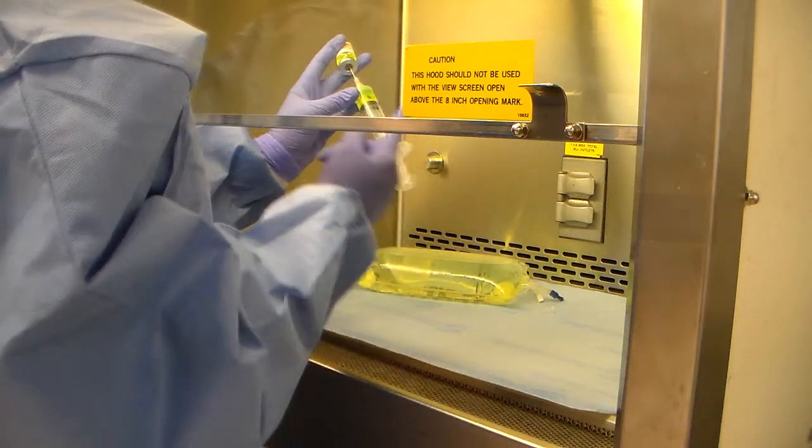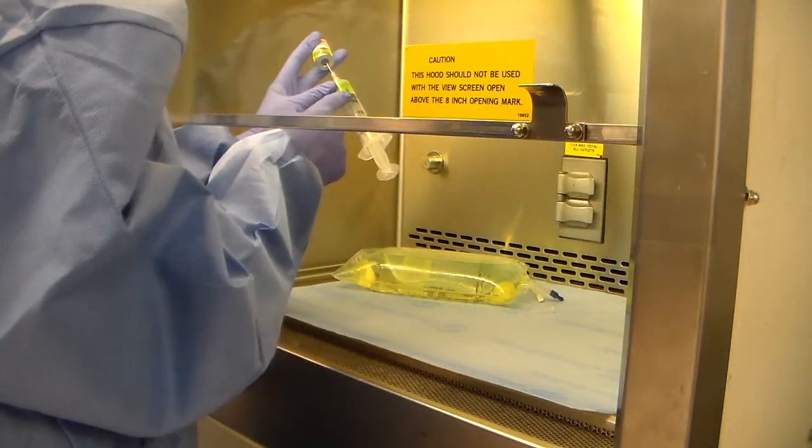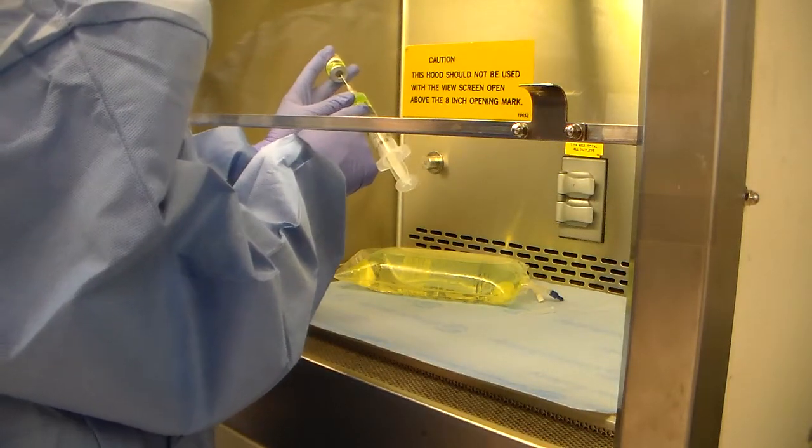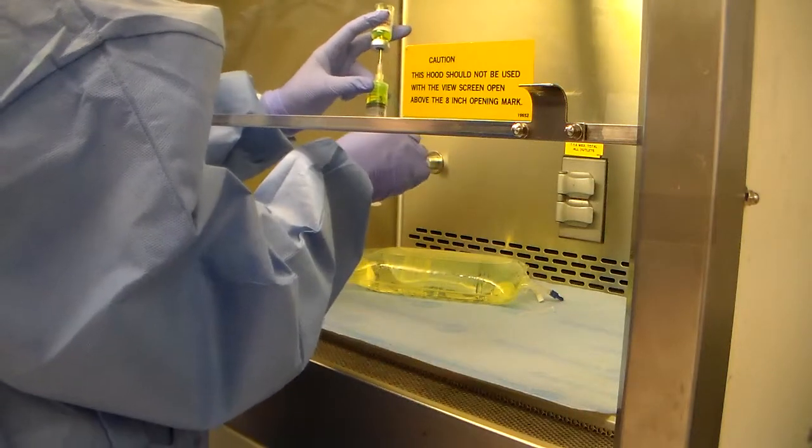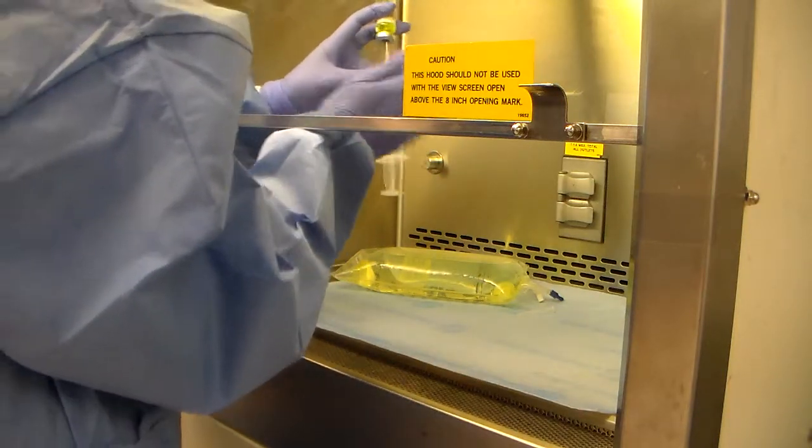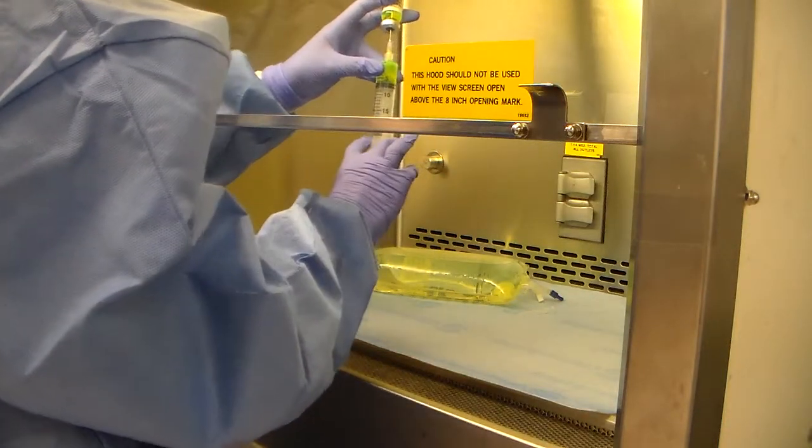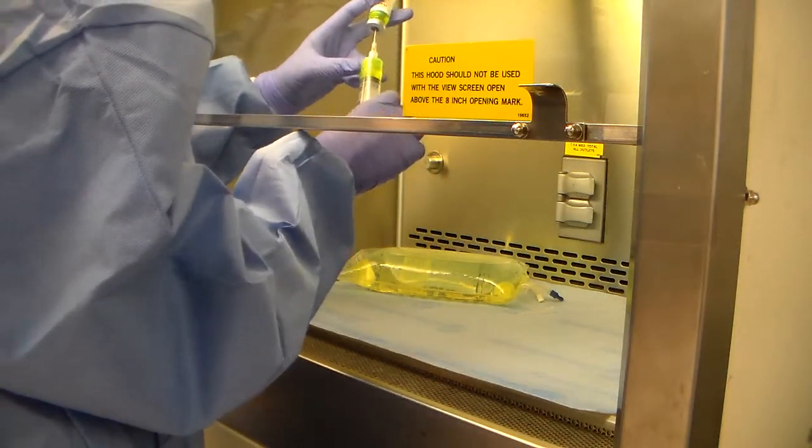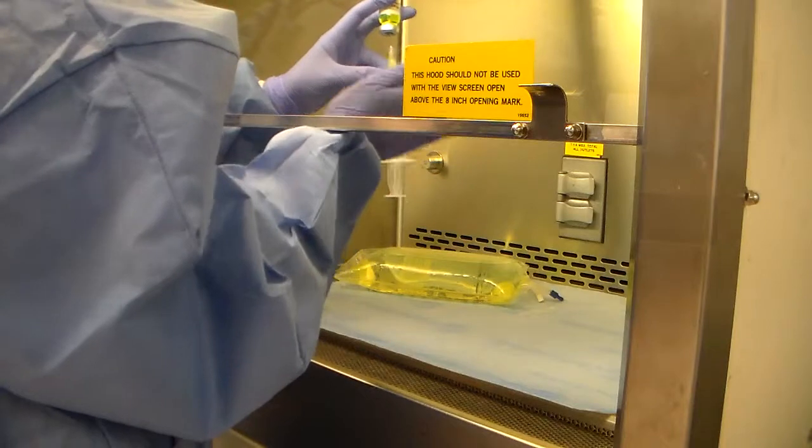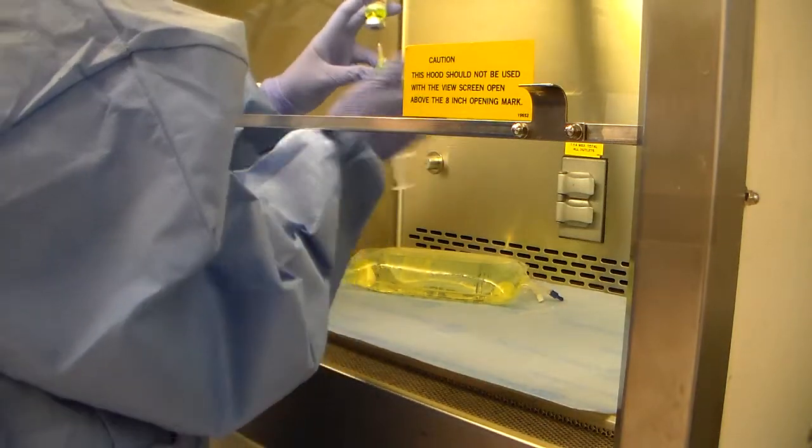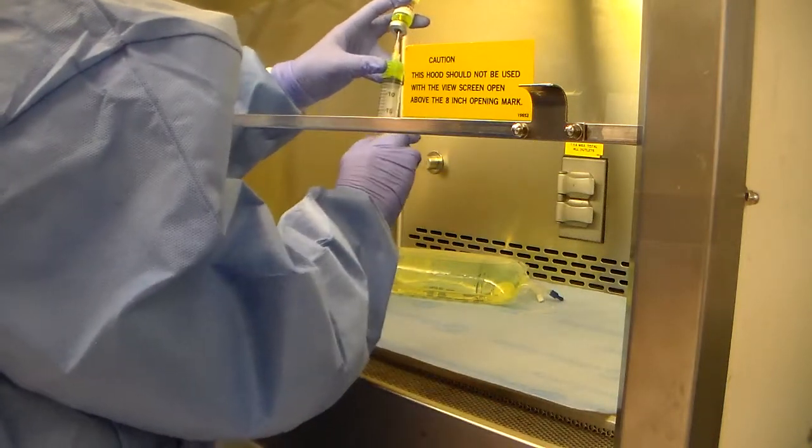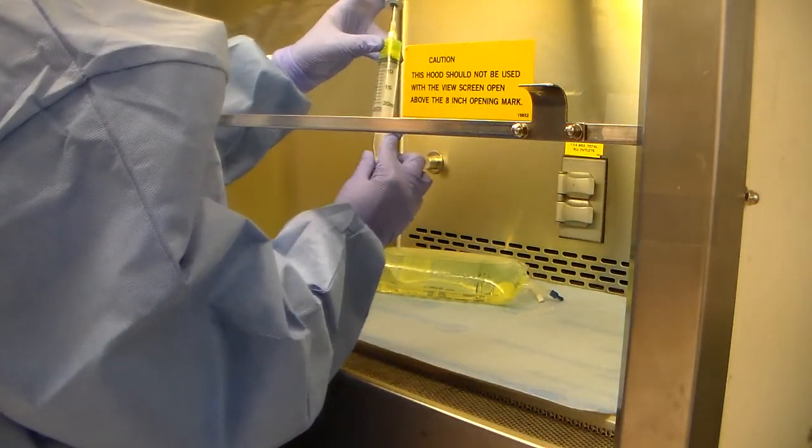So from this point, you'll notice that my syringe is pretty filled up. So from this point, I can no longer hold my vial this way. Now I'm going to have to hold it straight up. Since at this point, that critical area isn't getting the clean air, this process has to be fairly quick. So we clear our air bubbles as quickly as we can.